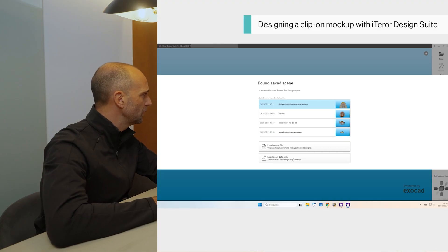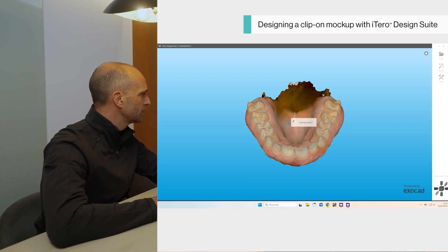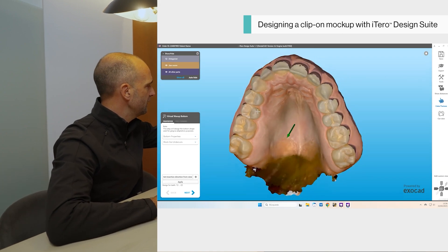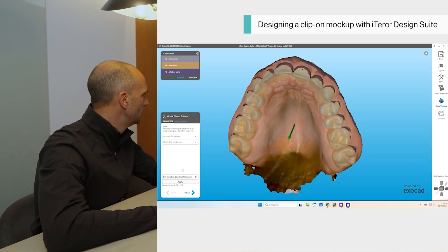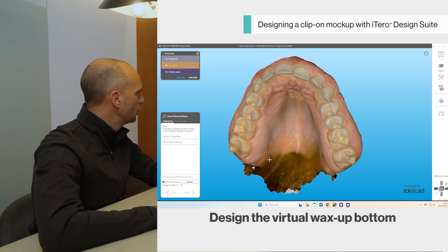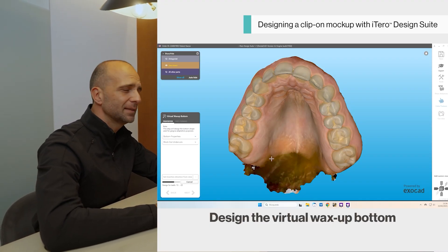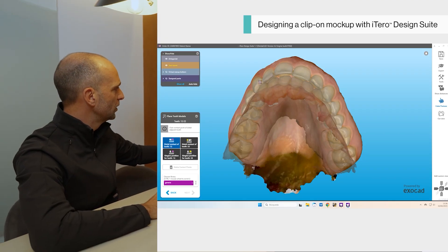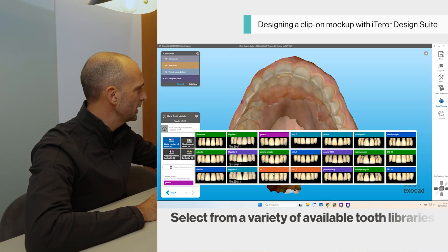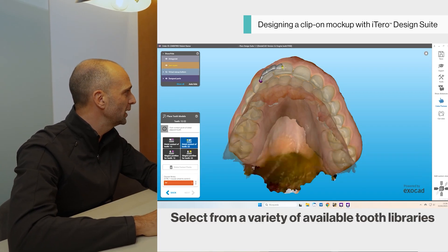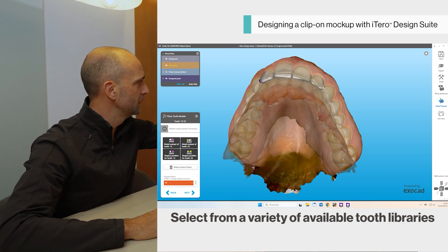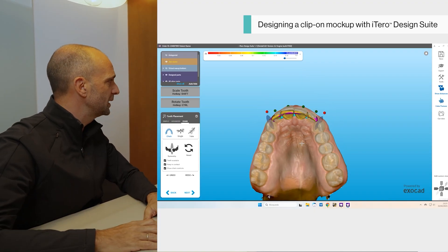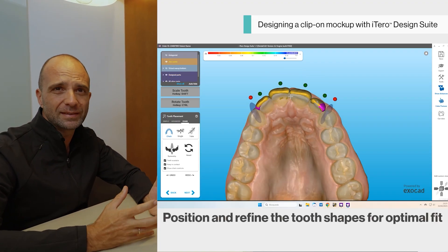The design suite will pop up on our PC and load all the patient's information. We have the patient's model here and will start to select — you can see how everything is selected in this area. The software already knows we are working in the mock-up model. We have some areas to block out if needed. We have selected the four anterior teeth in this case as a demonstration. You can also choose and select different libraries — normally we like the HD library — and you can see how easy it is to click from one area to another and have the shapes and forms preset from the natural library adapted into your patient's mouth.